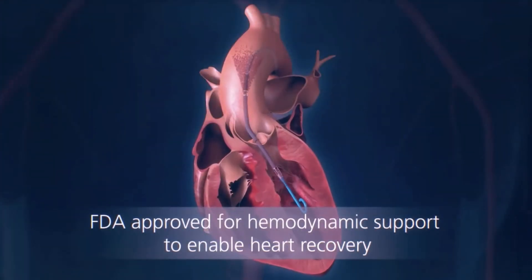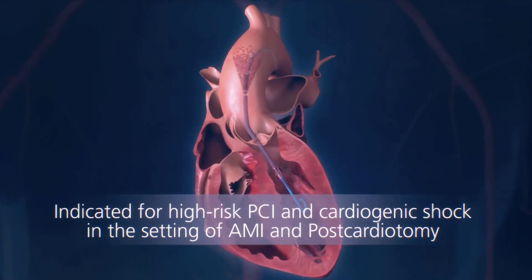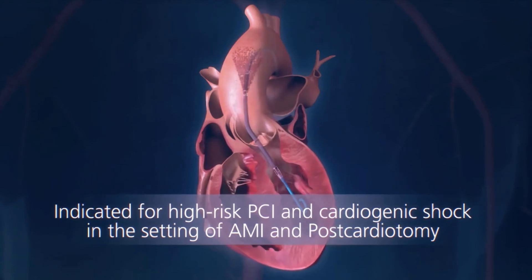This active unloading of the left ventricle increases end organ perfusion and protects the kidneys from acute injury. Impella is the only percutaneous heart pump providing hemodynamic support to enable heart recovery. Impella is indicated for protected PCI and cardiogenic shock in the setting of AMI and post-cardiotomy.